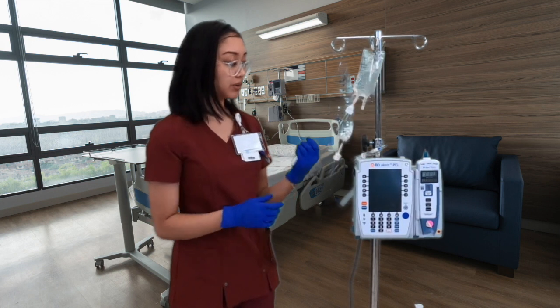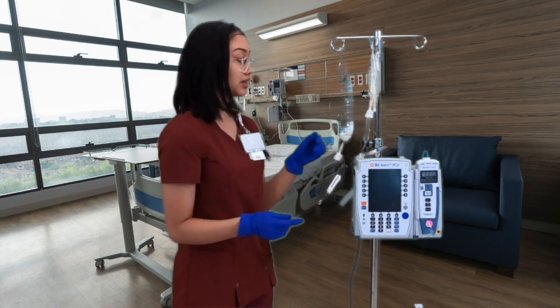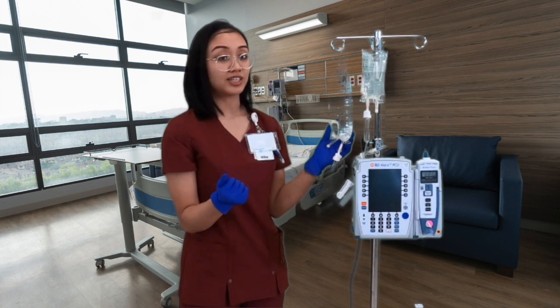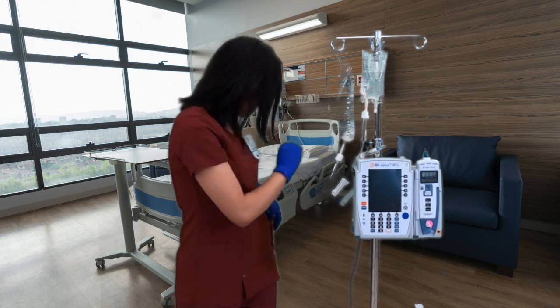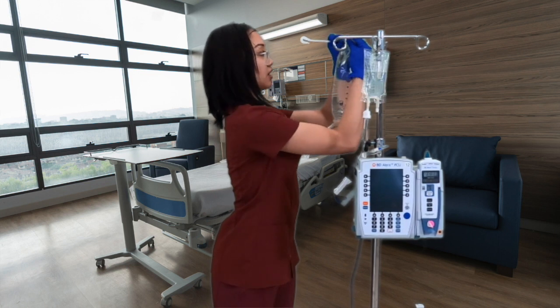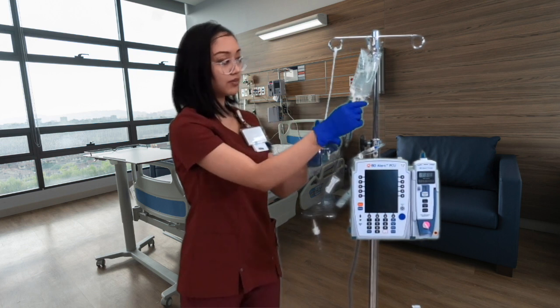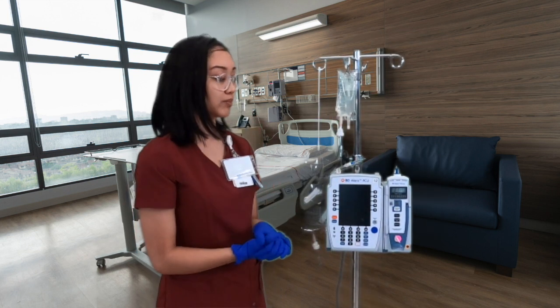Double-check your line to make sure there are no bubbles. Now instead of programming right away, we need to set up the bag heights: this primary bag should be lower than our antibiotic bag. We use gravity to pull the antibiotic out first. I have a small hook here — take the normal saline bag off the main pole and hang it on the hook lower down, then put the antibiotic bag back on the main pole. Now the antibiotic is higher than the normal saline.